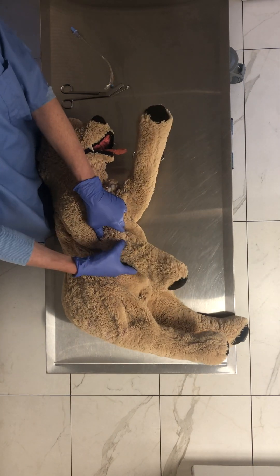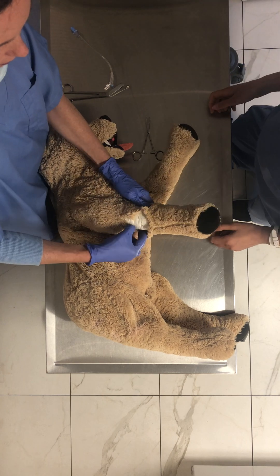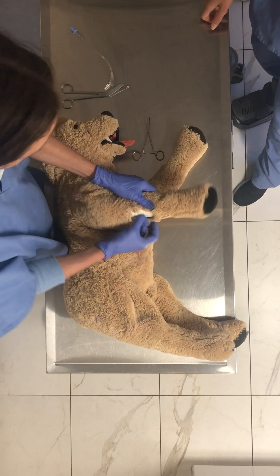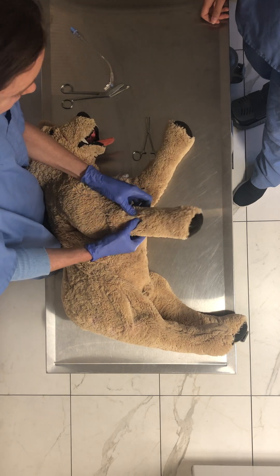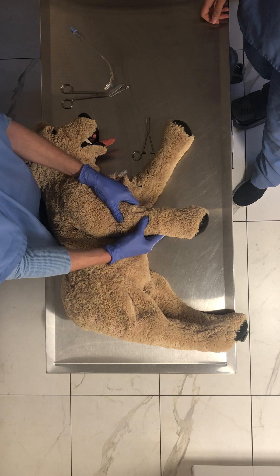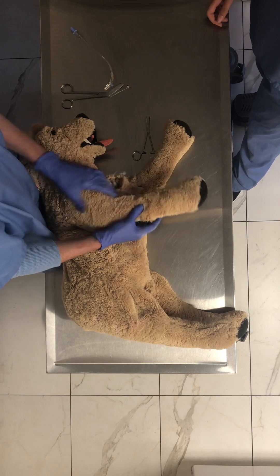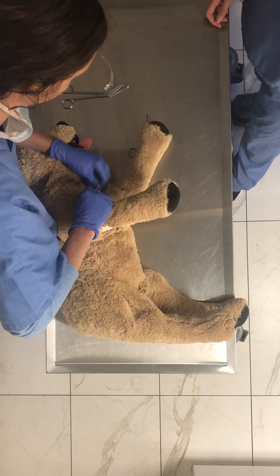So see, this little cephalic thing is right here. I try to put it like exactly where it goes. So you can just feel it right under the skin there — right there. Yeah, you can practice feeling it and then you can get it in.